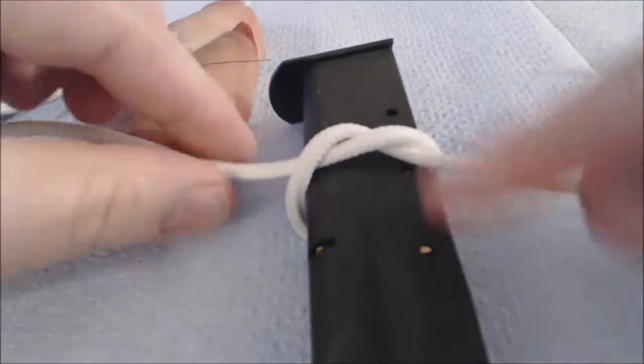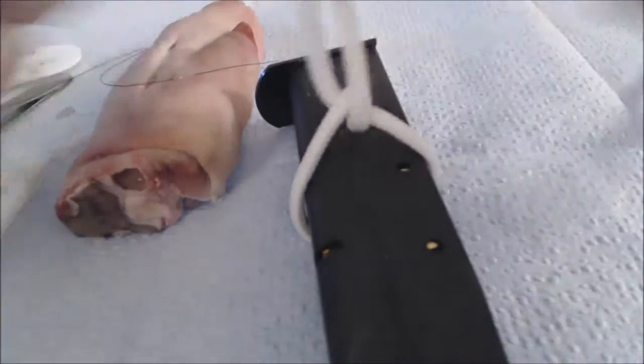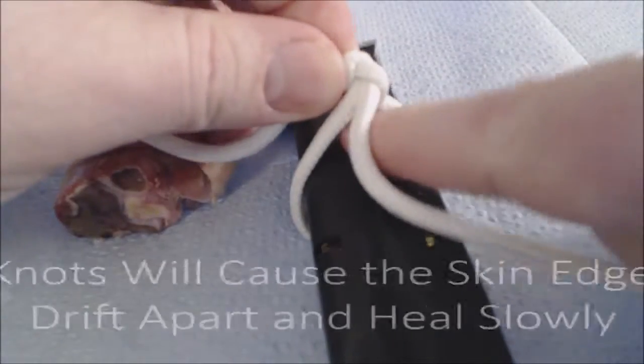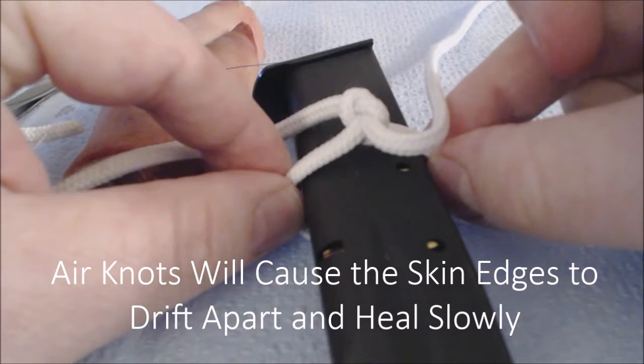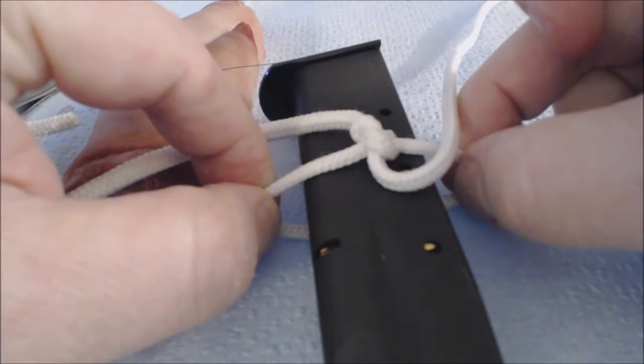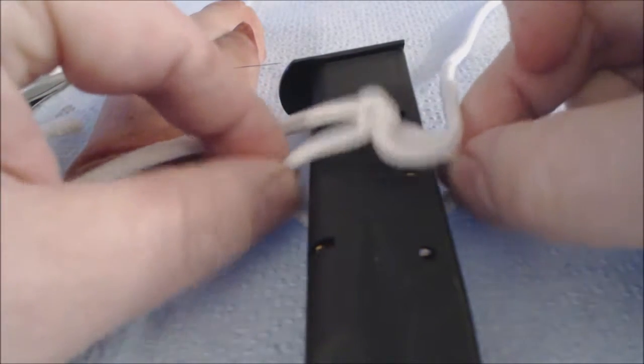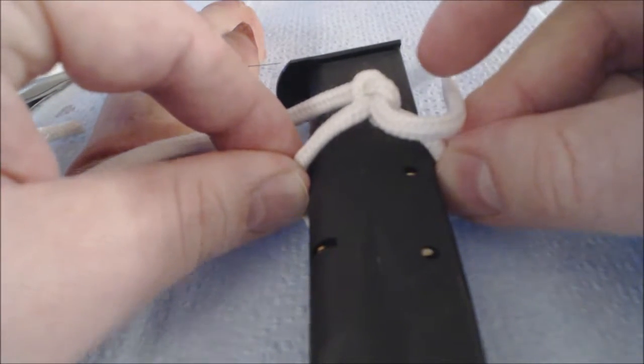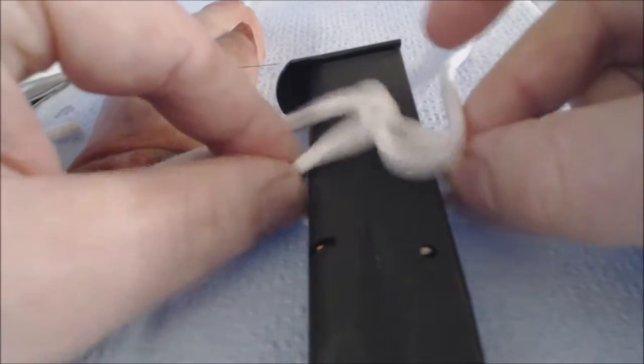An air knot occurs if after putting one of these in, the suture loosens up like this, a second knot is placed over the top of it, and underneath the knot, there's room or air. If this happens, then the two skin edges held by these portions of the suture will separate and you won't bring them together nicely as you'd like to. The reason we bring the wound edges together nicely is so that they'll heal faster. This knot would do very little for us or for humans.